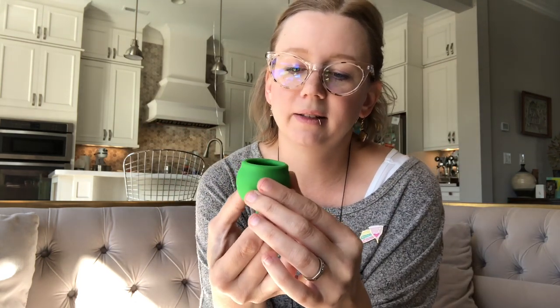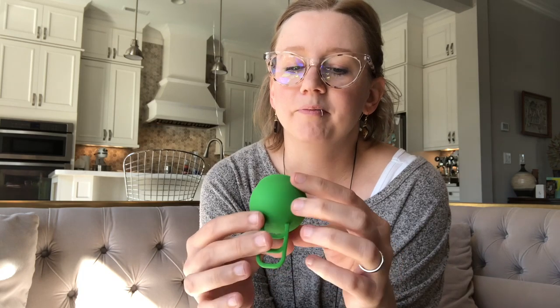On to my personal experience using this cup — it did not go well. I wish I could say it did. I was actually looking forward to trying it; it reminds me of the Femi Cycle, which is also round and has a similar stem. It was just too firm for me, and if you've seen my other reviews, firmer cups do make me pee slower.